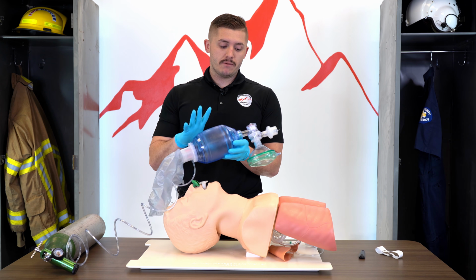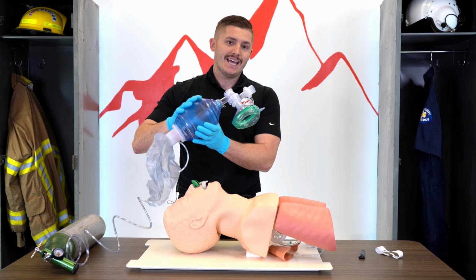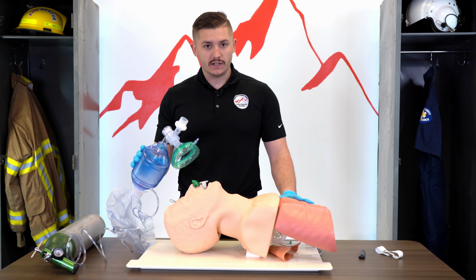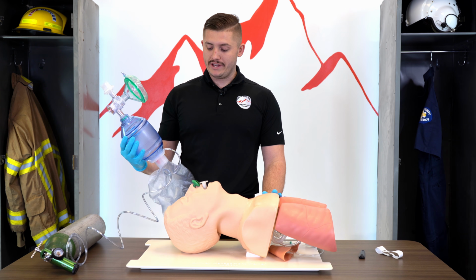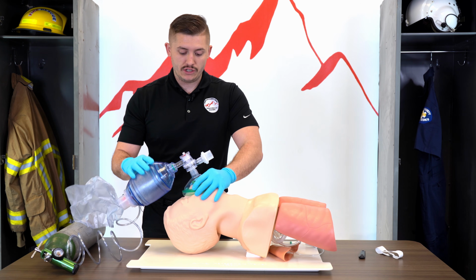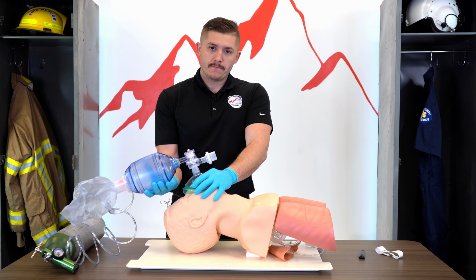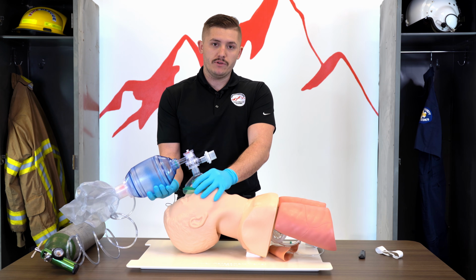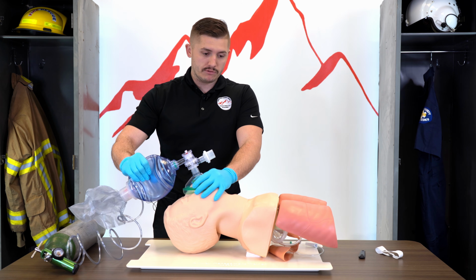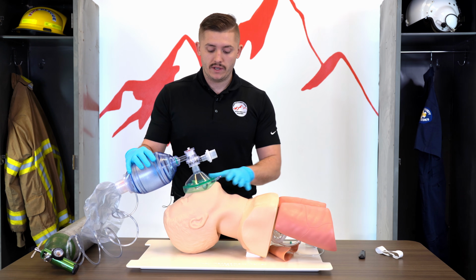With the bigger BVMs, people tend to get nervous and they will squeeze the entire bag. We've actually overpressurized that thoracic cavity. We've injured lungs. We put too much pressure on the heart. So we've actually worked against ourselves. When giving a breath, it's smooth, it's controlled. I like to do underhand because this feels awkward for me, and now I actually have to focus on what I'm doing. Instead of this, which is so natural, I can look and do so many other things. I know I'm squeezing the bag just fine, and I'm not actually evaluating what I'm doing.